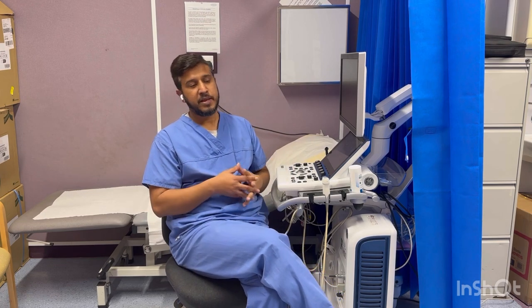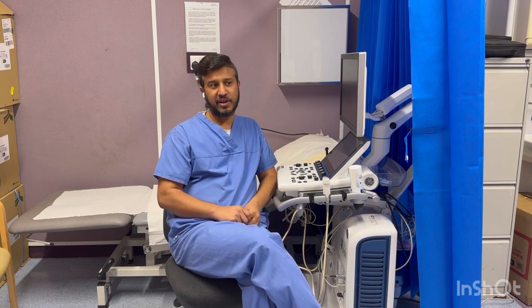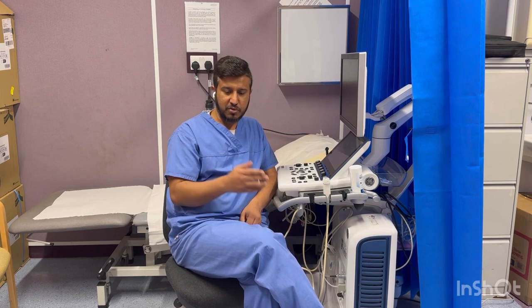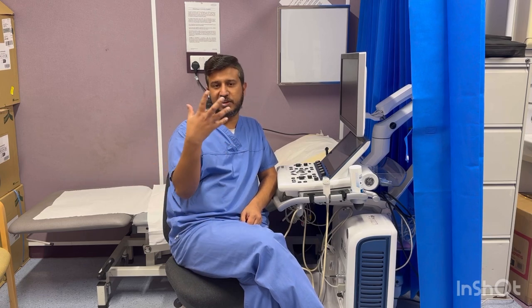I will not go into the deep physics, but if you want I can make a separate vlog for that. You can also learn the physics from your books. I'll just give you the hints about what the important techniques are and why we use them. The important techniques are 2D echocardiography, M-mode echocardiography, and Doppler echocardiography — which includes color Doppler, pulse wave, continuous wave Doppler, and tissue Doppler.